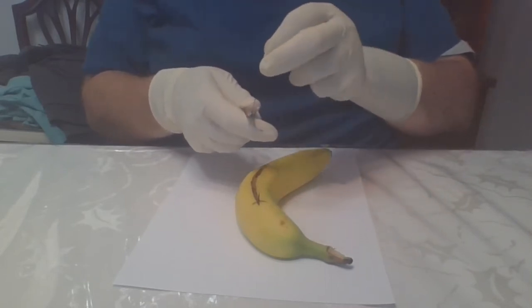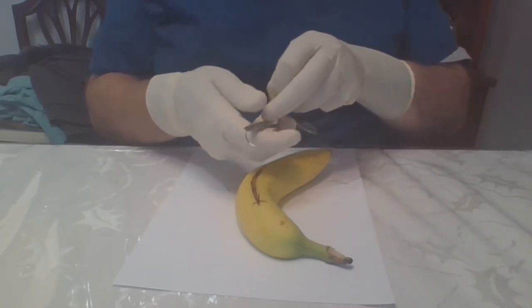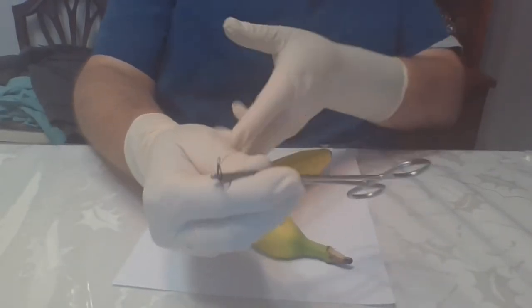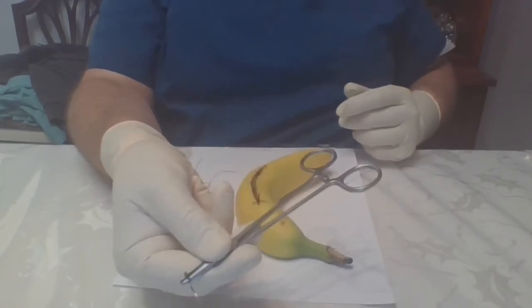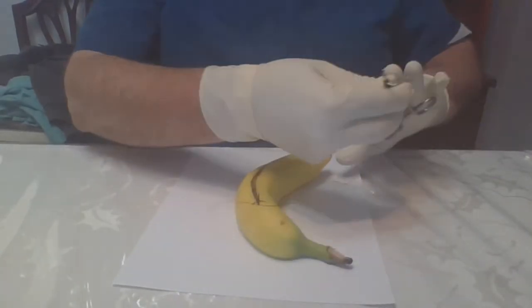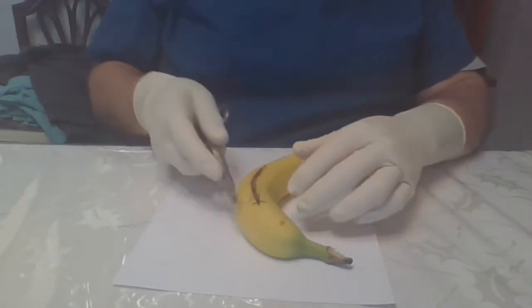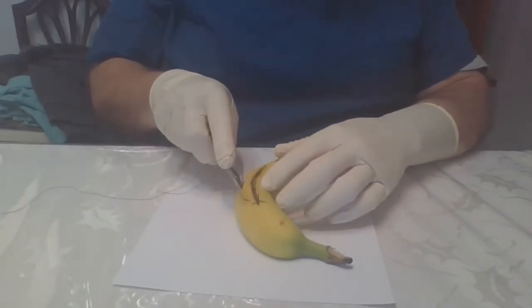Under and in front. Then behind into the jaw of the needle driver. Under your hand. Or move the suture out of the way. I've got it held under my thumb. And then pass that to the surgeon. And then they can put in another stitch.